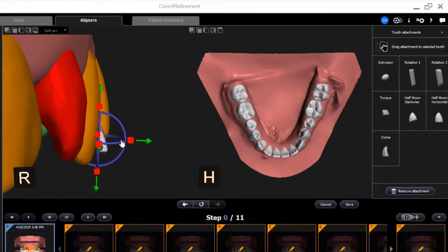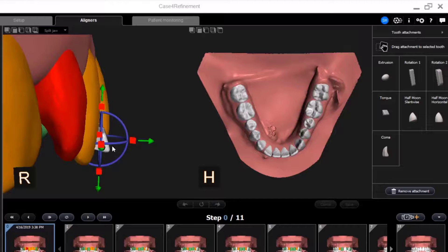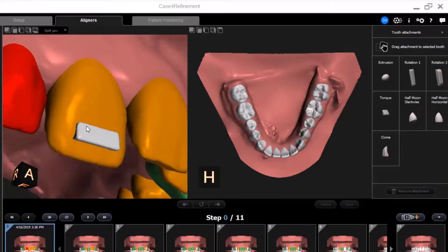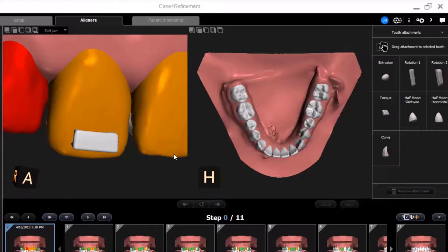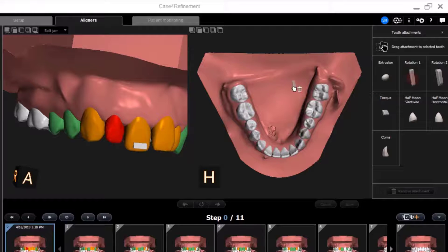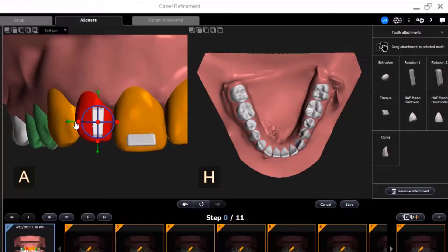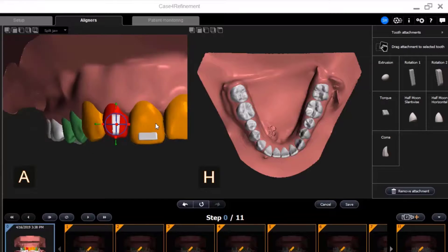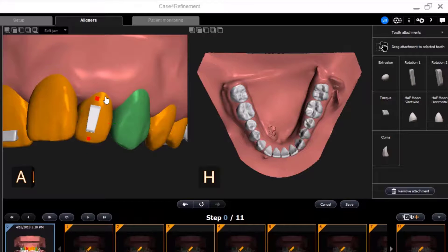As I'm adjusting an attachment, if I accidentally remove it from the surface of the tooth, CS Model Plus will intelligently lock it back to the surface of the tooth when I click Save. Once placed, I can click and drag the model to view the attachment from multiple views and angles. Now I will quickly add a few additional attachments. The lateral incisor is displayed in red, so I'll select Rotation Attachment and click and drag to adjust it on the tooth surface. Once I've confirmed the placement of the attachment, I'll zoom out, rotate the model, and select the final attachment. I'll click and drag the attachment onto the tooth and make the final adjustments to its size and placement.